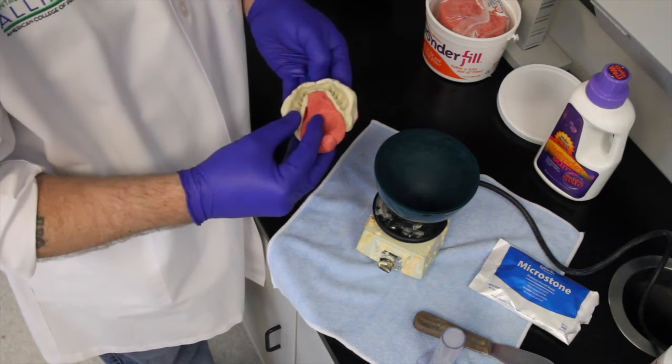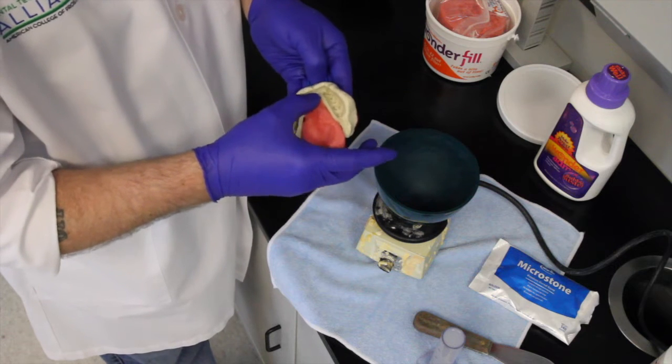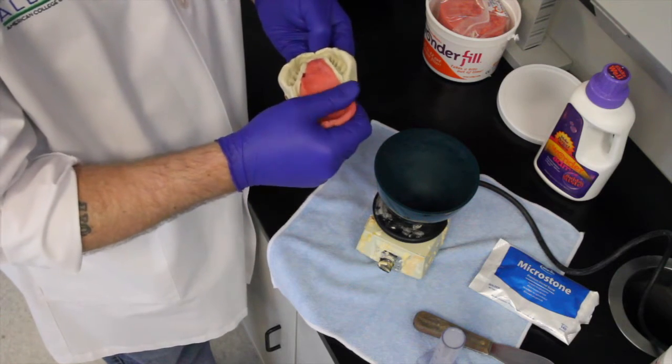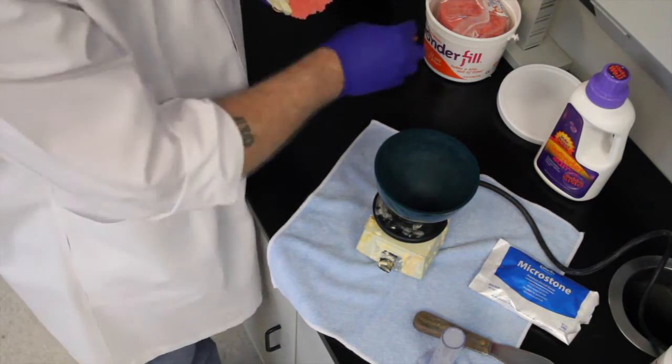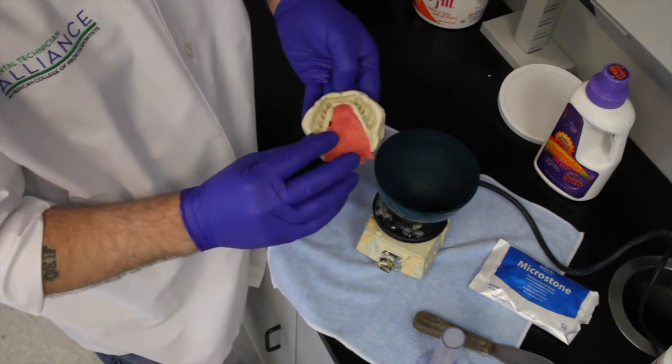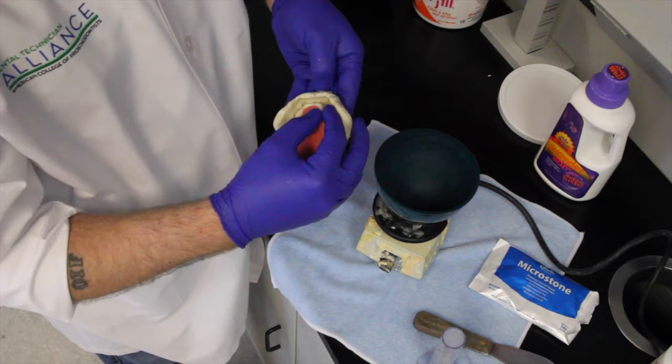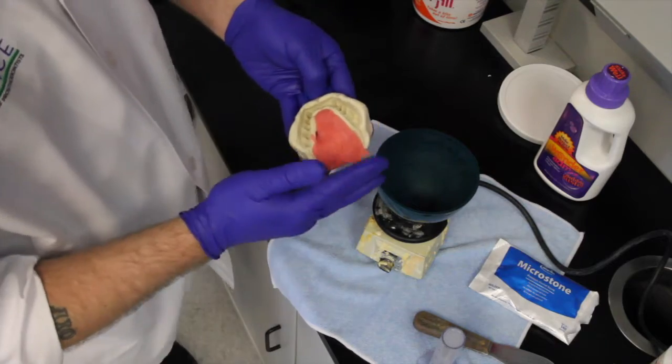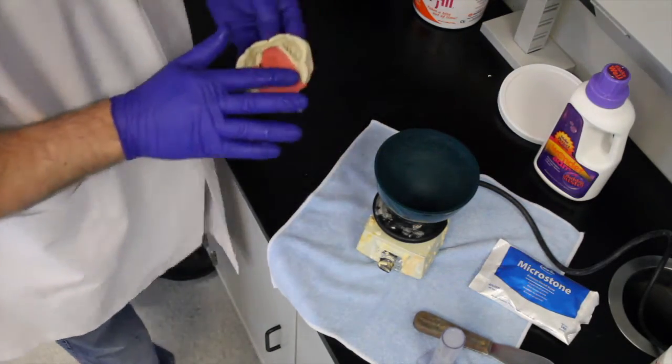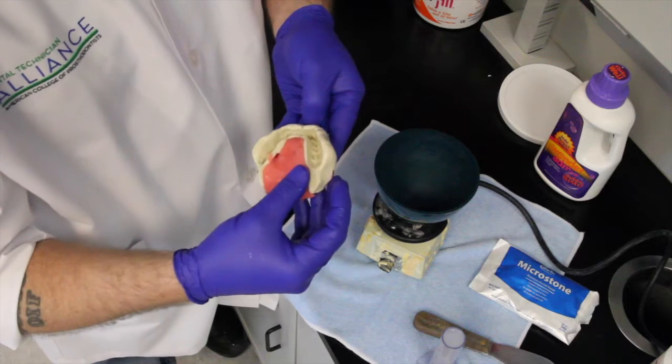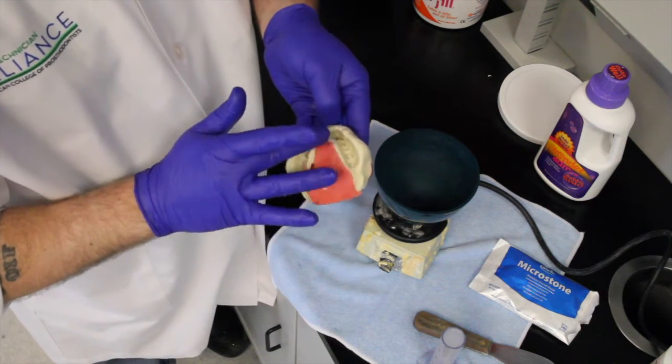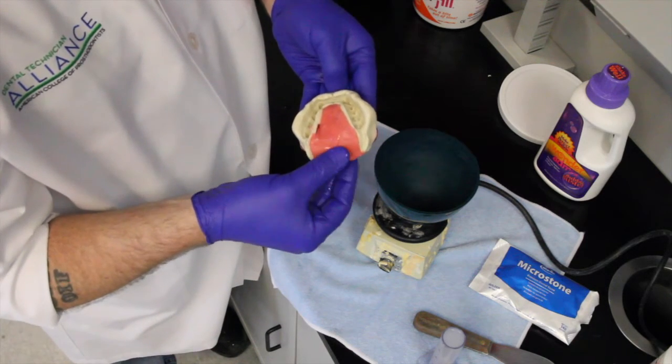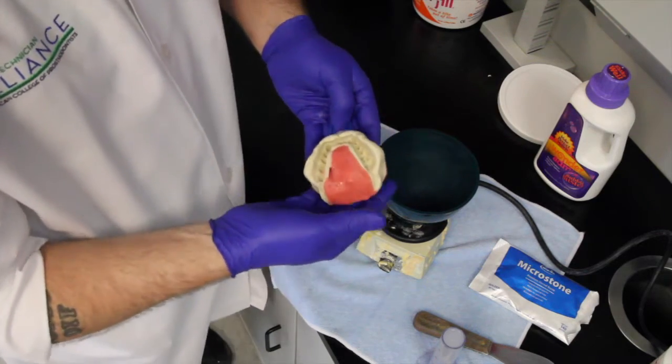I'm just going to add that in right there. Try not to distort the impression itself. That's going to give you a nice attractive model to send out to any laboratory. I'm just going to adapt it in there. It will stick to every impression material. This excess back here, I'm just going to pinch off. We're not going to need that. Now if you really want to get it nice and smooth, wet your finger and you can smooth out this product really nicely. That is nice.